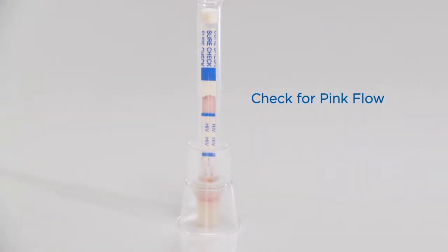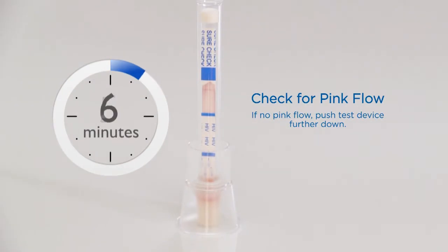Check for pink flow in one minute. If no pink flow, push test device further down. Then wait 15 minutes. Do not read results after 20 minutes.